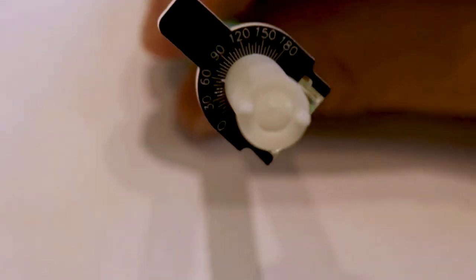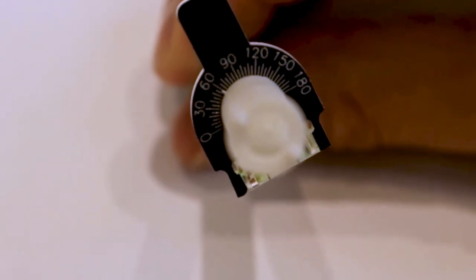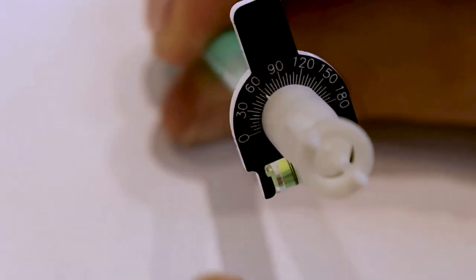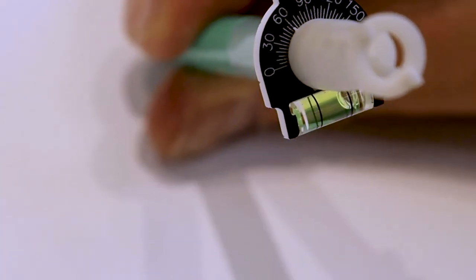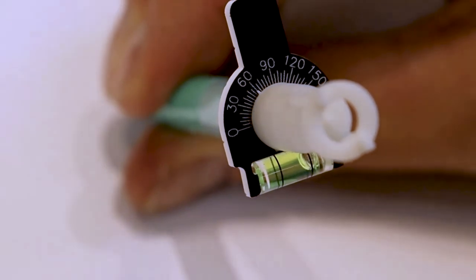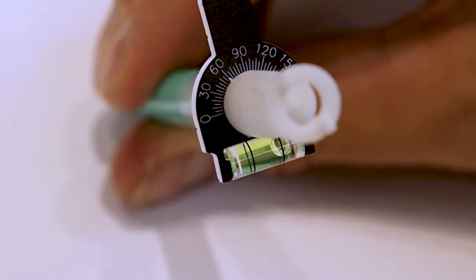You can see here that the axis markings on the device are separated into five degree demarcations with a small white notch visible there marking the device at 60 degrees. This allows for easy axis marking within one degree.